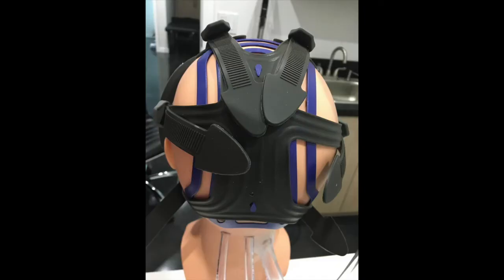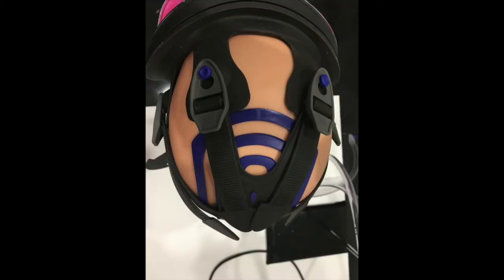It also has a head harness which allows distribution of forces from those six straps, shown from the top. It also has a quick release function with straps that can be adjusted and lock in the adjustment, so that you don't have to change the adjustment each time you don and doff this mask.